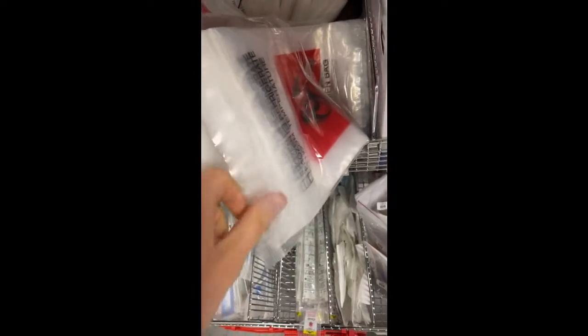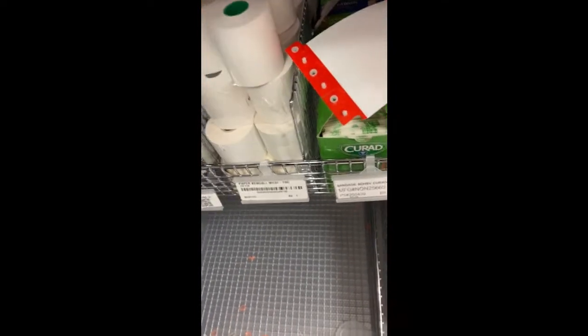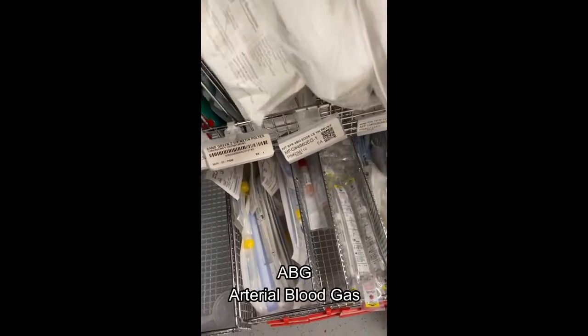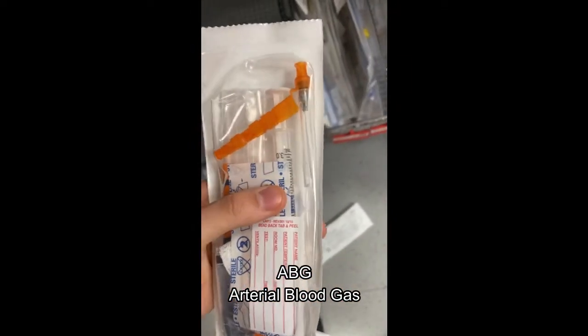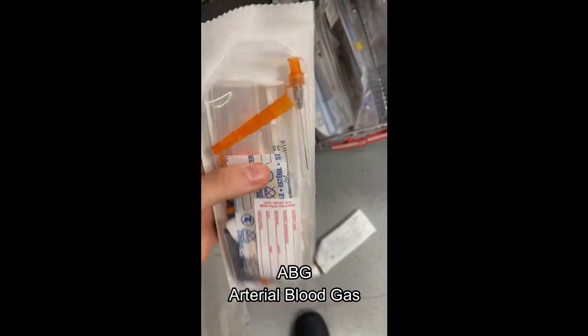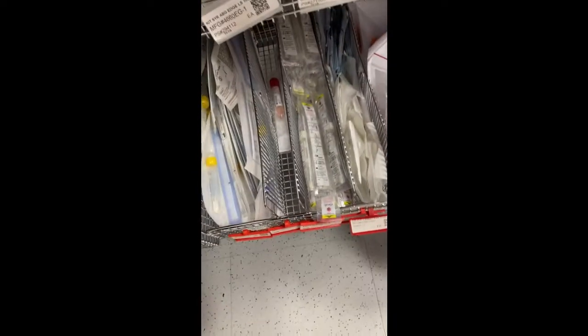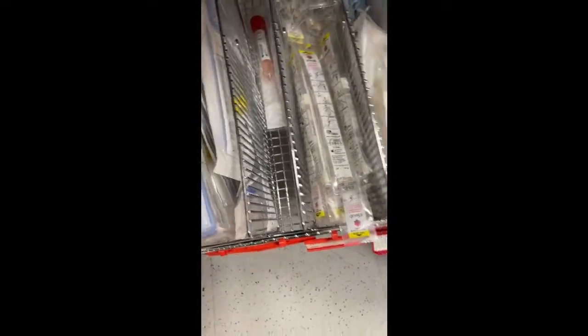Here are specimen bags, just to send the blood up. Here are EKG papers, which the EKG reading prints on. Here is an ABG. So these are if you're doing an arterial blood stick, they're called ABGs. Here are all different swabs, like for the flu, MRSA, different stuff like that.